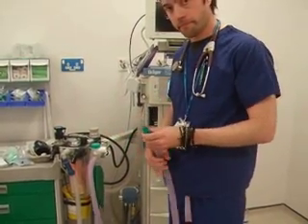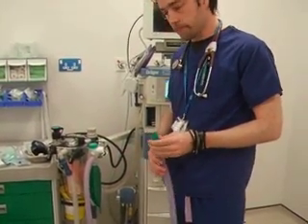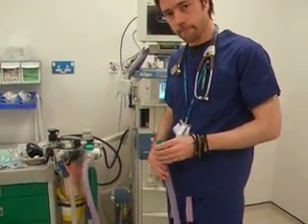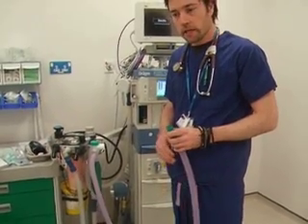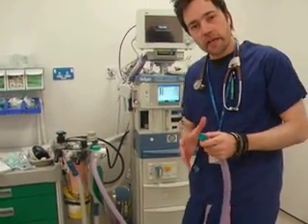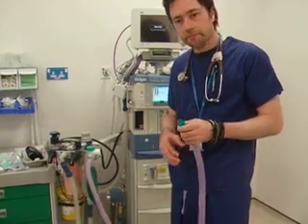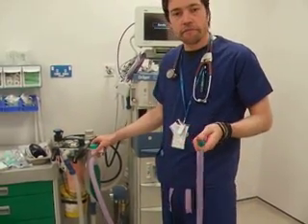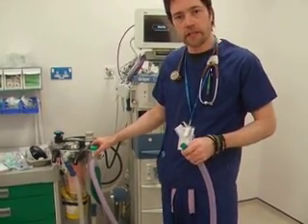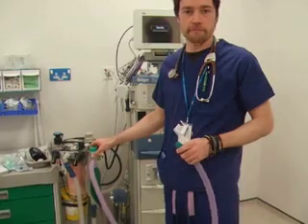And can you tell me what the minimum fresh gas flow is for spontaneous ventilation? This is two to three times the minute ventilation of the patient, which will be roughly about 14 to 15 litres per minute in a 70kg man.